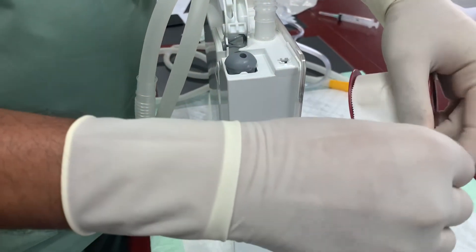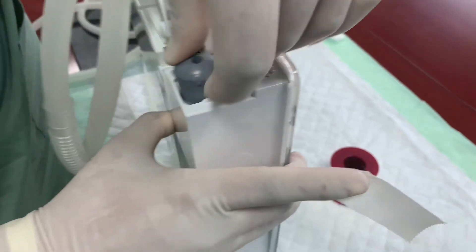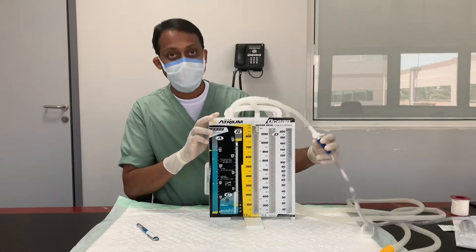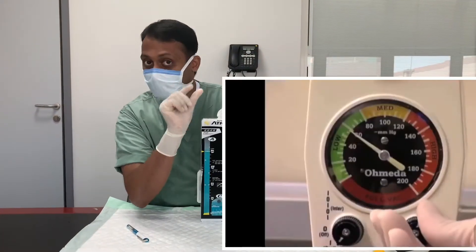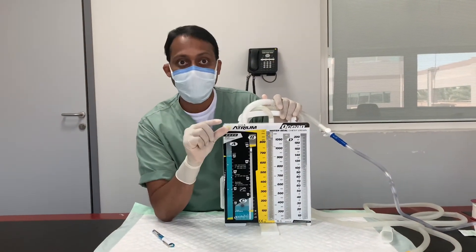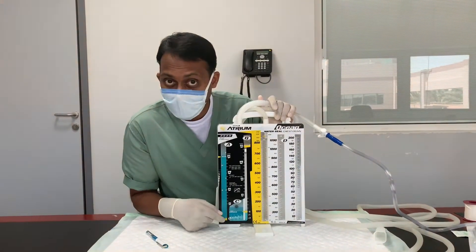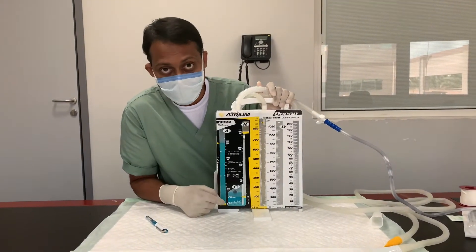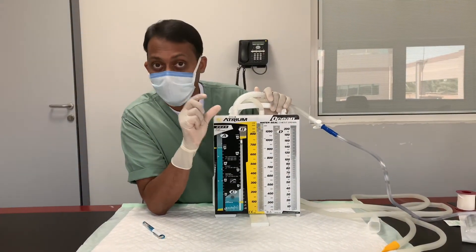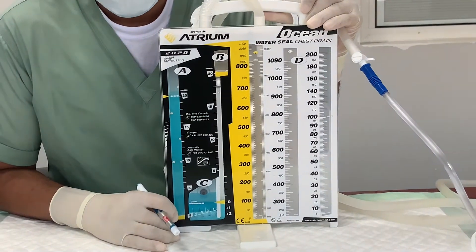If the doctor orders minus 30 or minus 40, use this technique: fill the suction control chamber to 20, then take a non-porous tape and cover the holes of the vent plug. After that, go to the wall-mounted suction setup and adjust the meter to the desired pressure — for example, minus 30. In this situation there may be minimal or no bubbling in the suction control chamber, but the wall suction setting will determine the actual suction pressure applied to the patient.